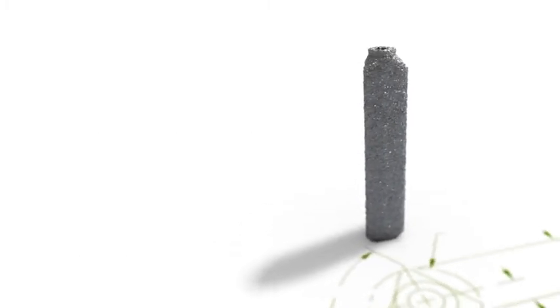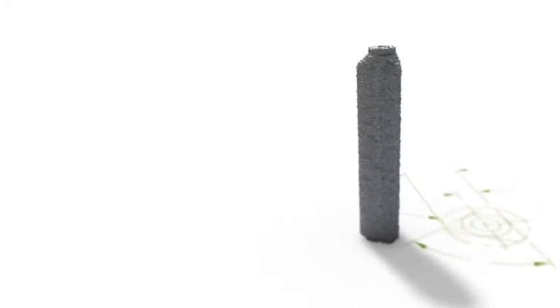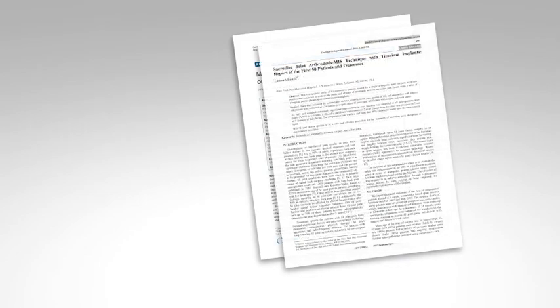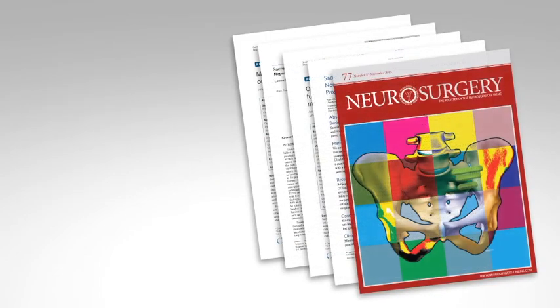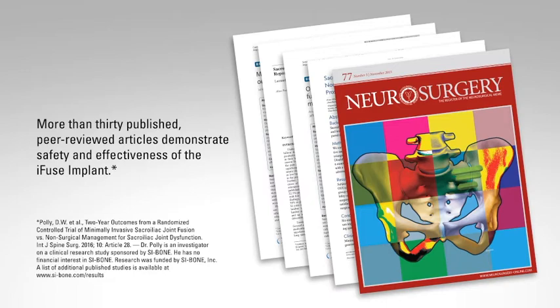More than 25,000 procedures have been performed with the iFUSE implant, the method of choice for SI joint fusion. SI joint treatment using the patented triangular design of the iFUSE implant has produced unparalleled clinical results. More than 30 published, peer-reviewed articles demonstrate the safety and effectiveness of the iFUSE implant.